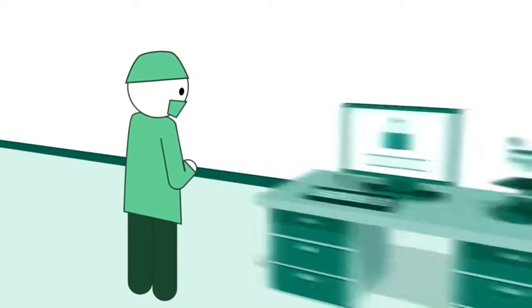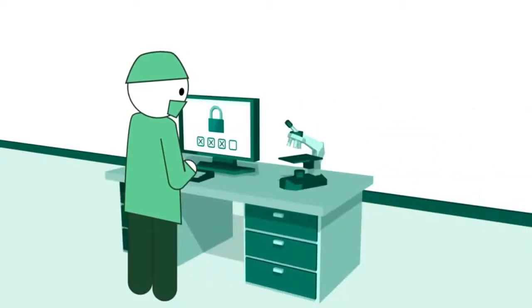Key patient information will be at your fingertips, so you can make more informed decisions without losing sight of your patient's privacy.